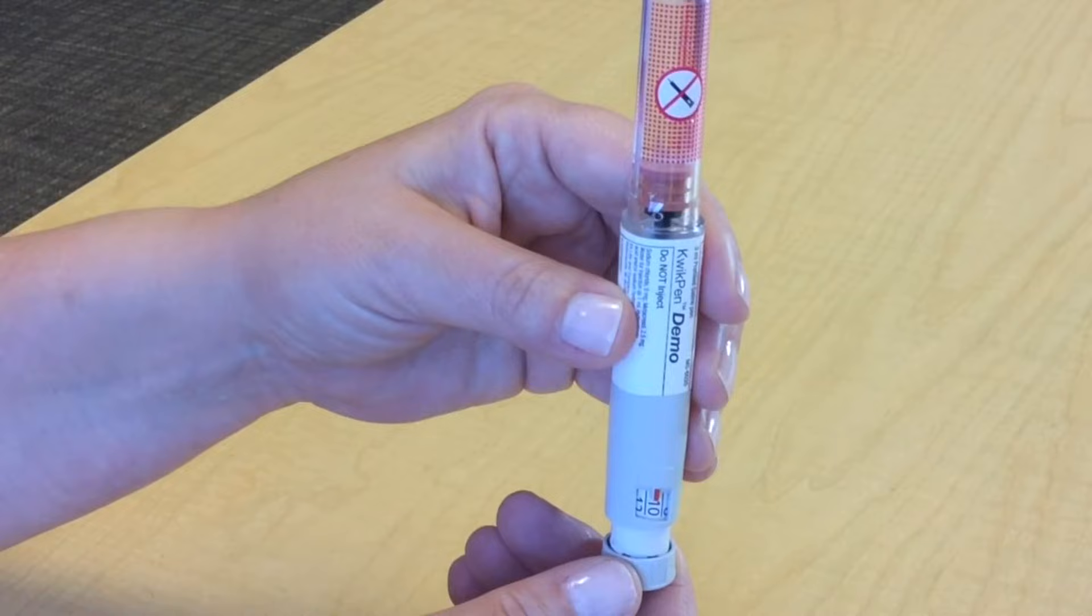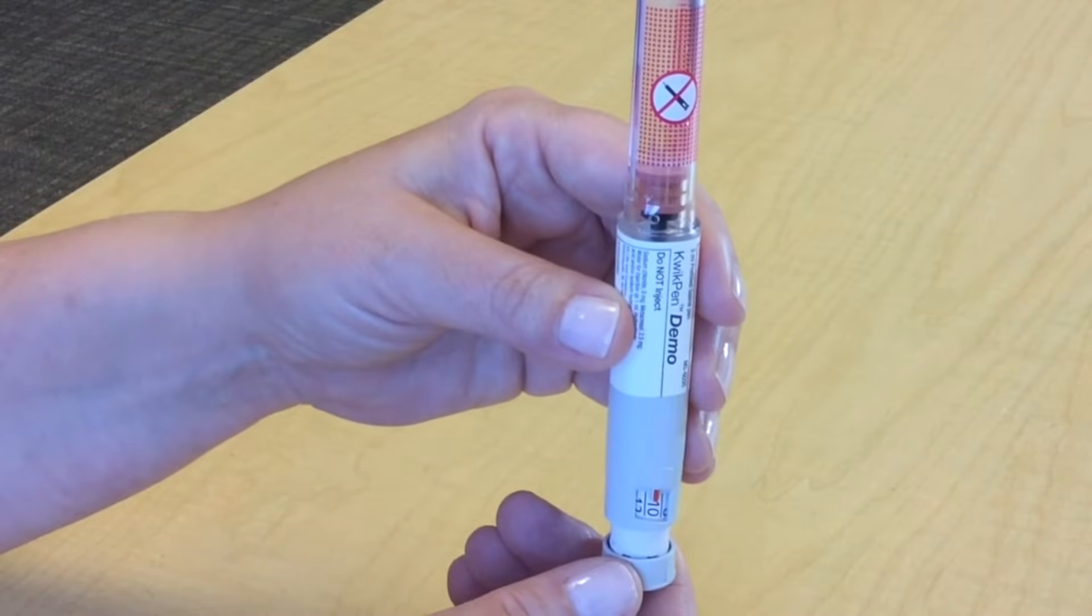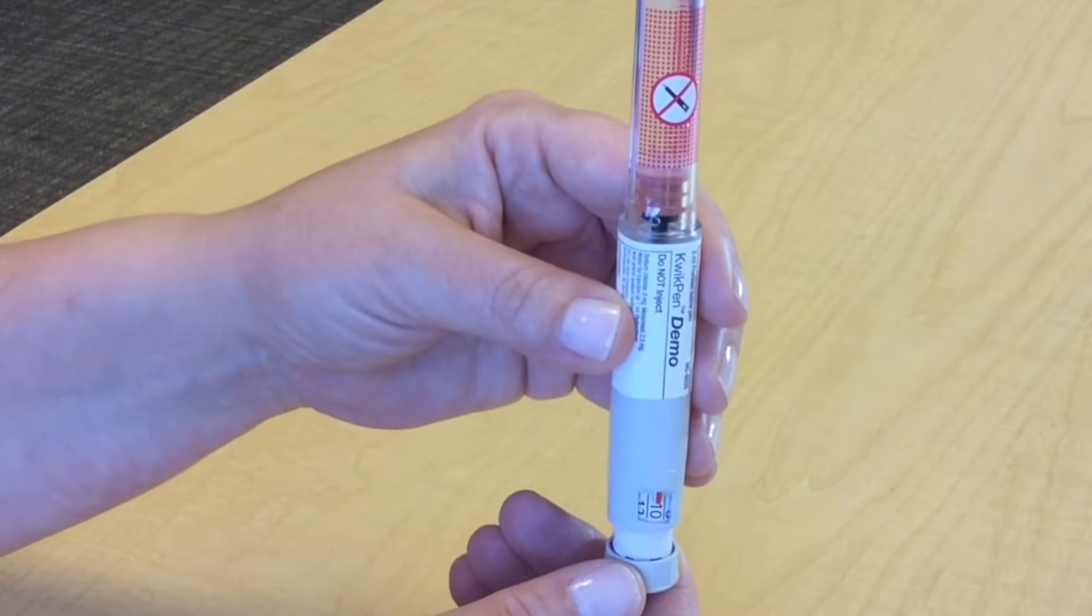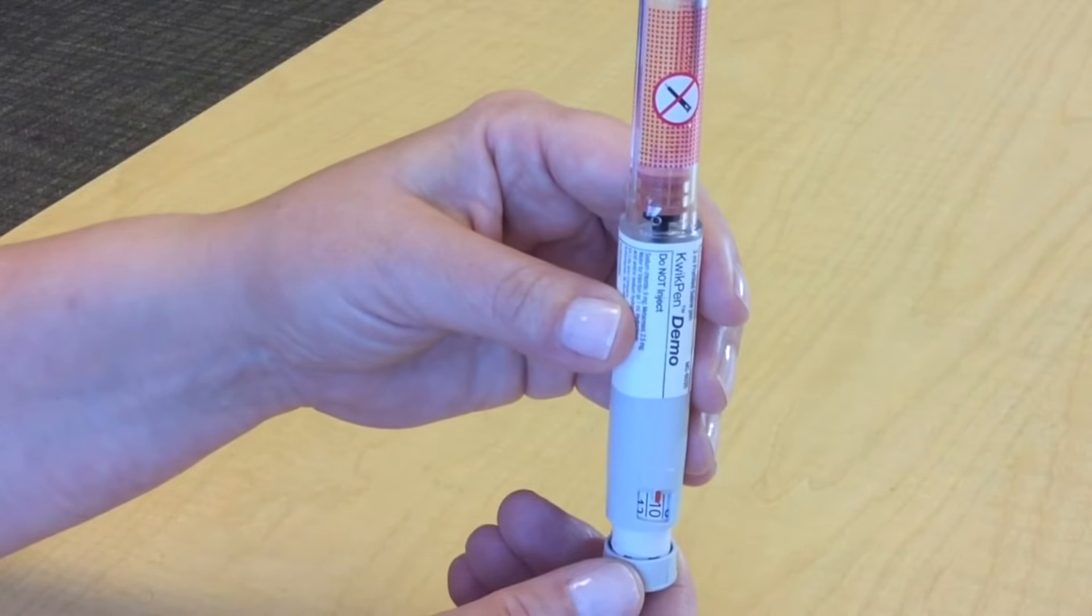If your dose is more than can be dialed, you must give yourself more than one injection. A new needle and the priming step has to be repeated for each injection.